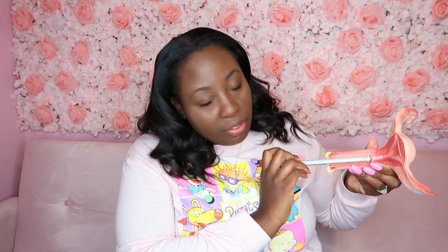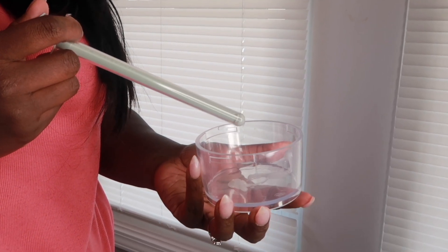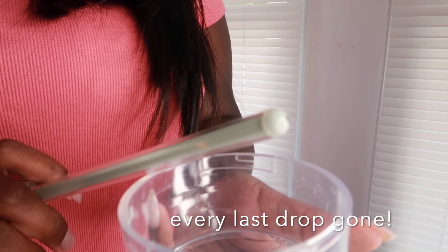The Cryo Baby will go all the way through the vaginal canal to your cervix. The other great thing about it is that it's simple and easy to use — it comes with the syringe itself and a specimen cup, so you're able to draw up the specimen into the syringe and expel it. It expels every last drop, which matters enormously with low volume sperm because every bit counts.